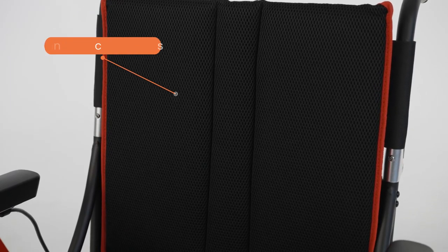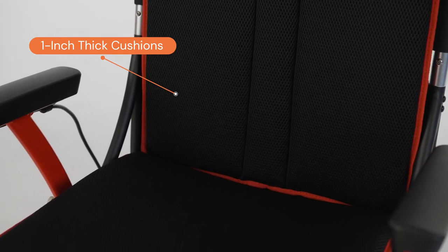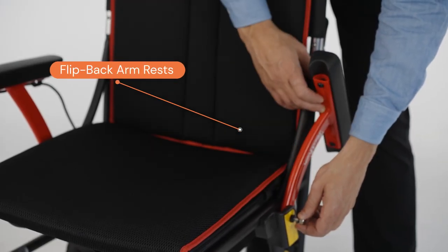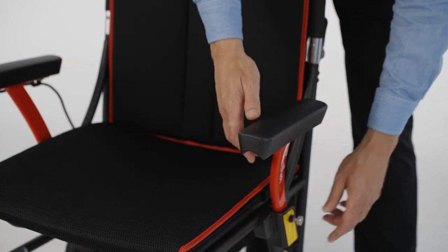Here are some unique features. Comfort: it has one-inch seat and back, really super comfortable cushions with beautiful red piping. It has flip-back arms, which makes it super easy for entry and exit of your chair, and it also allows you to be super close to a table when eating.